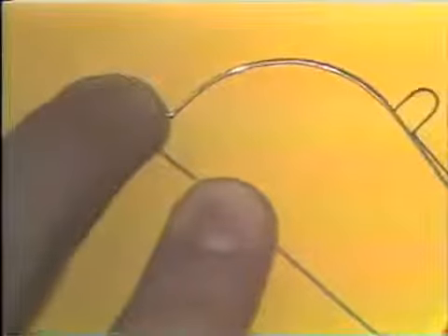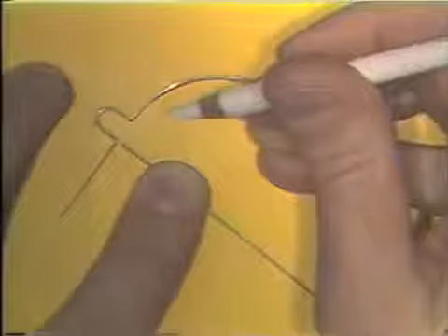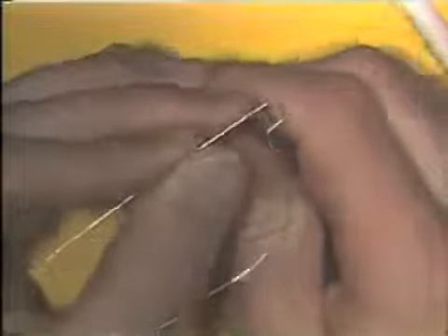The next section of the wire is bent by marking the spot where the next right angle bend should be, and again the beaks of the plier are placed just to the side of the mark. The wire is properly oriented in the pliers with control of plane and space in mind.